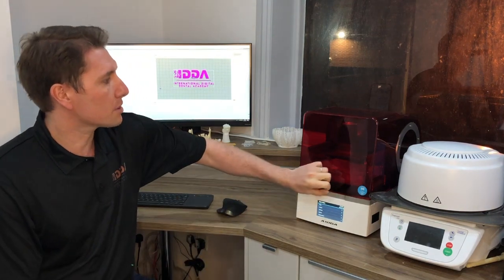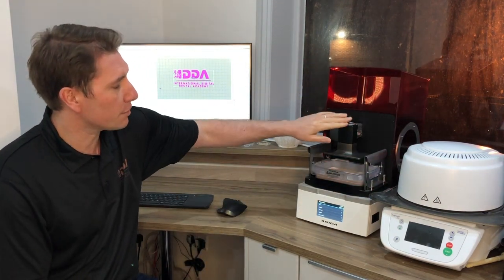Maybe I will in the future, I don't know, but at the time being everything about it is really nice — it just works, works really well out of the box.